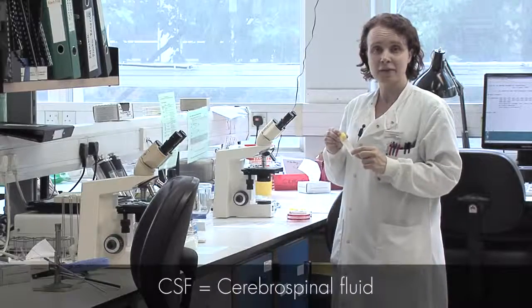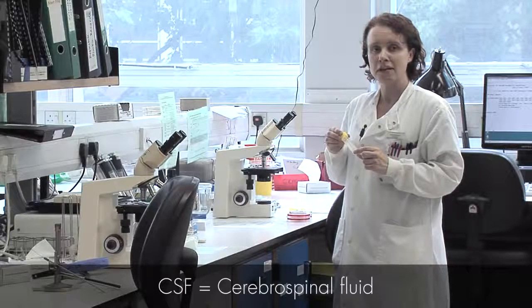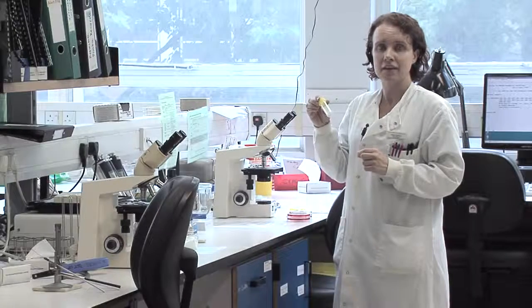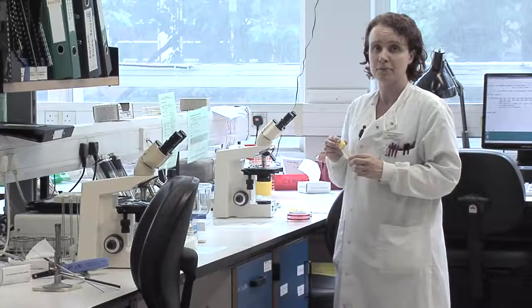This is the CSF bench where we receive cerebrospinal fluids to help in the diagnosis of meningitis. CSF would come and the biomedical scientists would need to examine the CSF directly and then do a cell count on the CSF using a counting chamber. The CSF is also cultured and microscopy is performed.